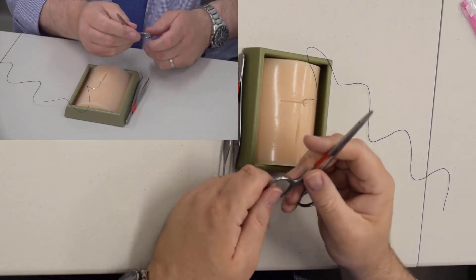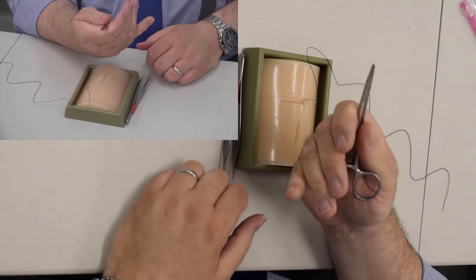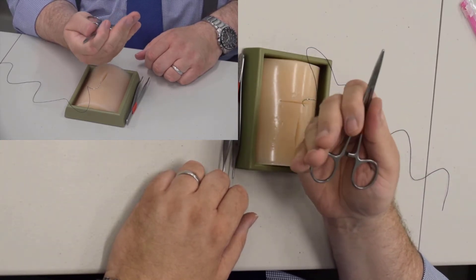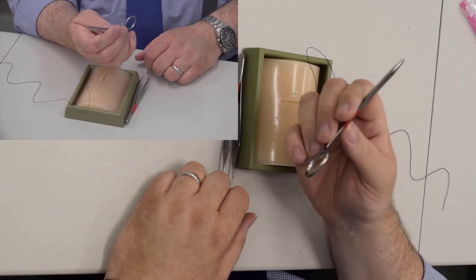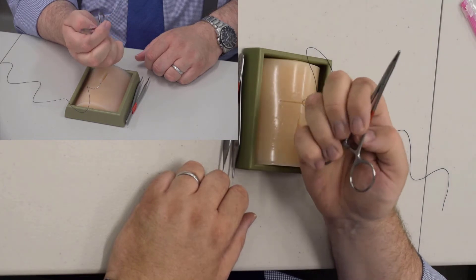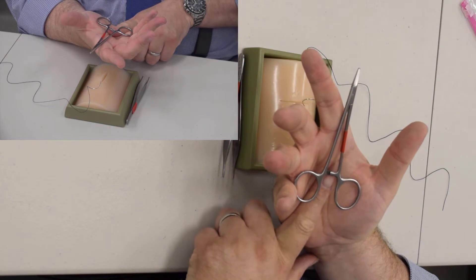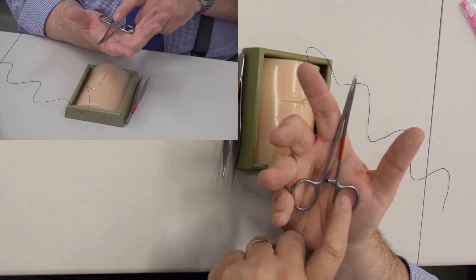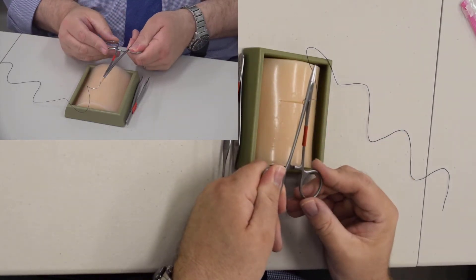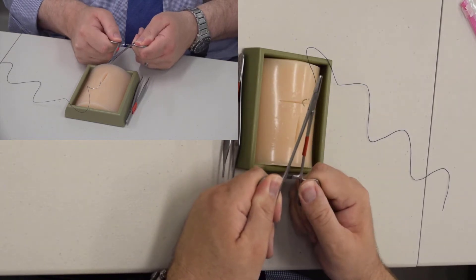These needle holders I'm teaching you with are sort of stiff. The ones we use in the operating room probably cost between $200 and $300 a piece. For those of you who are left-handed, they do make left-handed needle drivers, and there is a difference in where they click — the left-handed needle driver clicks opposite, with the left half locking over the ridges instead of the right.